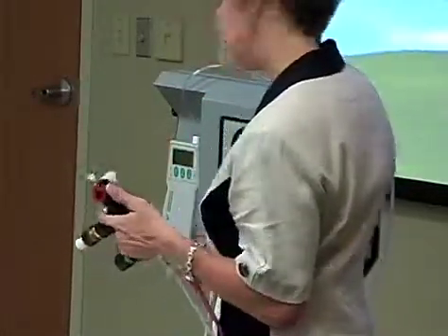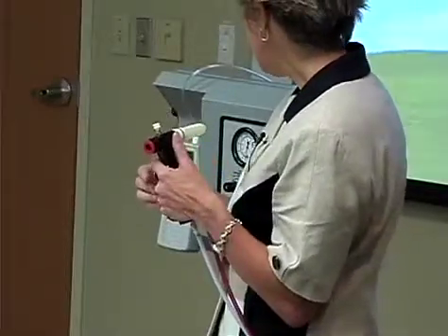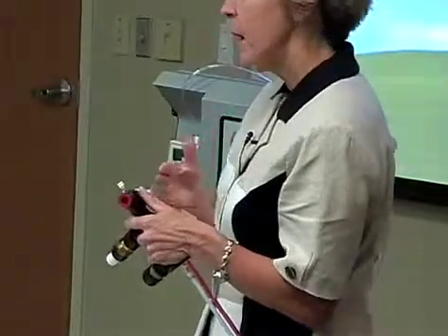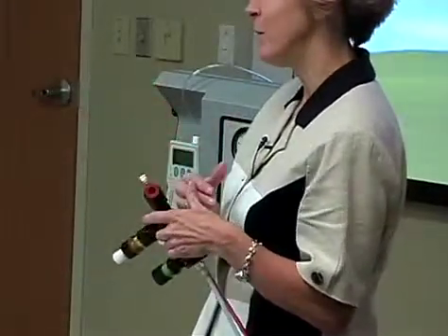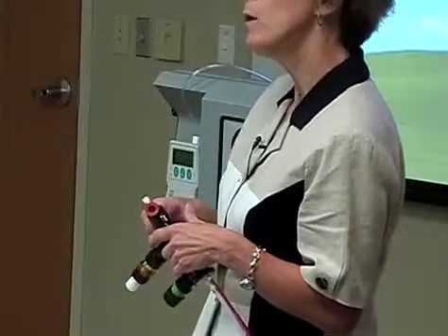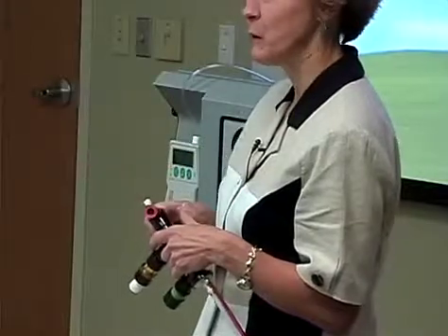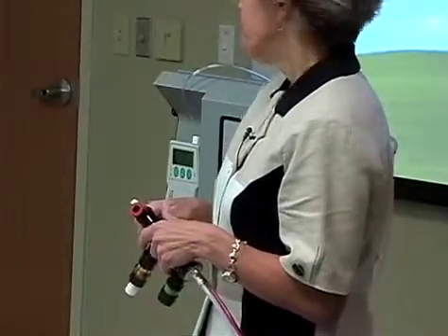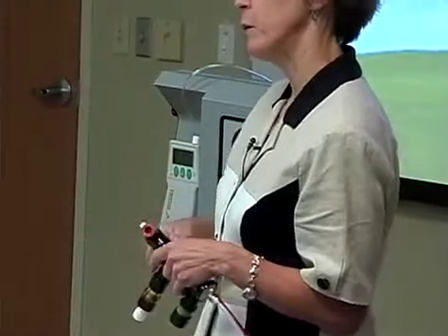Okay, then so now you've tried your baby on conventional, and now our standard, as Wes said, any kid that's respiratory, we put on high frequency. Some of those kids, let's say it's a pretty basic kid and really not that sick, we will put them on conventional. It's up to us what we do, but we've grown so accustomed to the high frequency. If we get a baby and they're on pressures of 25 or greater, they automatically move over. Zone has us move over once we're up to pressures of 25.